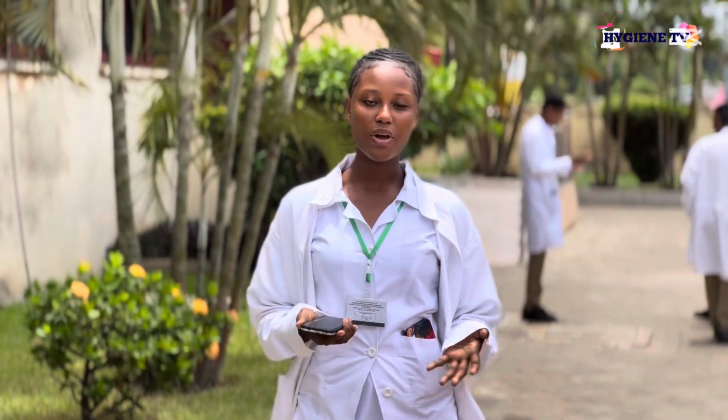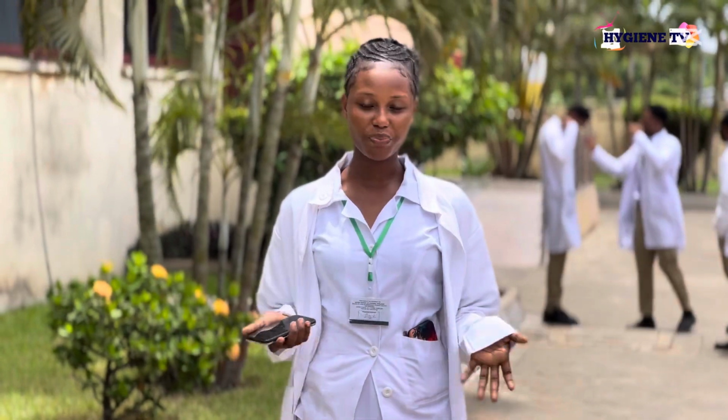We also went to other laboratories like the immunohematology lab, the microbiology lab, and the component processing laboratory. In the microbiology lab, the processing of TTI infections is done, like hepatitis A, B, C, syphilis, and HIV. At the end of it all, we learned that blood is a vital part of healthcare. So we encourage everyone out there, be a donor and save a life.